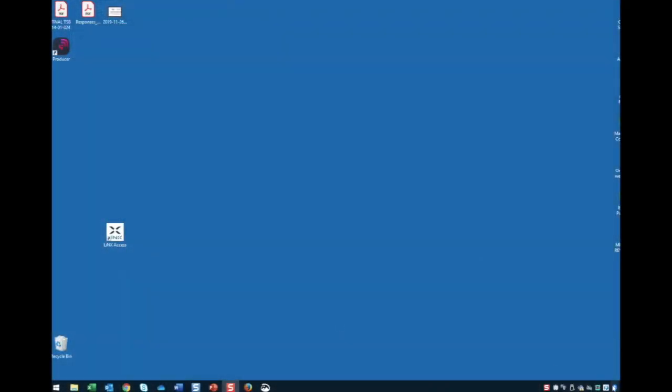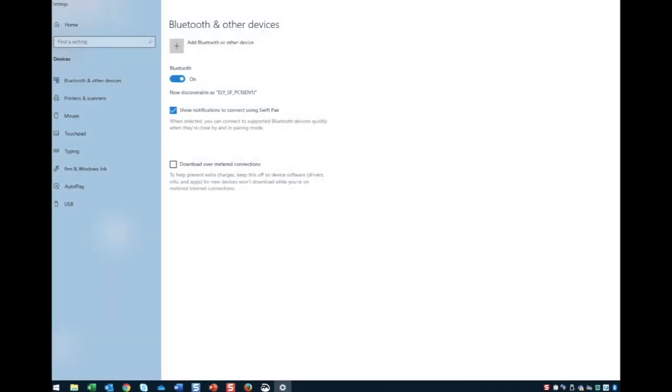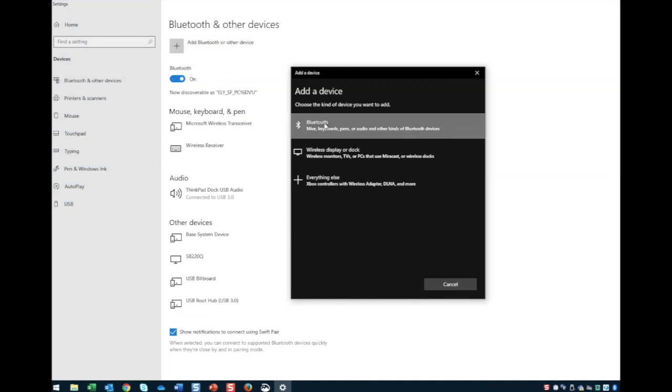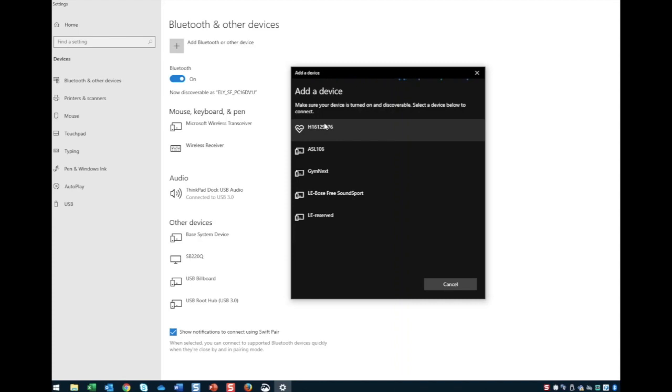Next, we will open up the Bluetooth settings on our device and click Add a Bluetooth device. Tap on the name of your LAC. Unless renamed, the LAC is identified via a serial number located on the back of the LAC underneath the barcode. It's identified by a letter followed by a series of eight numbers. My LAC starts with H and ends in 7-6.